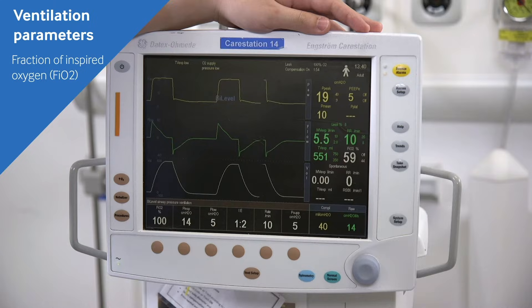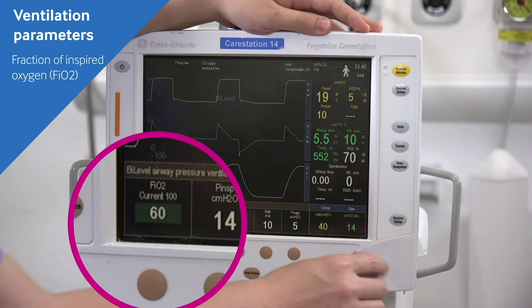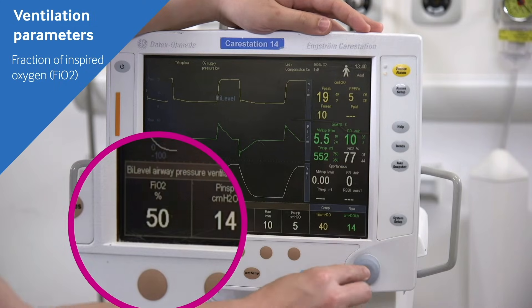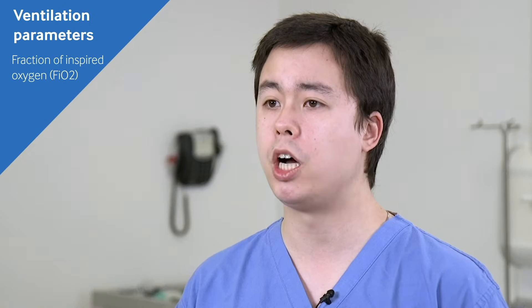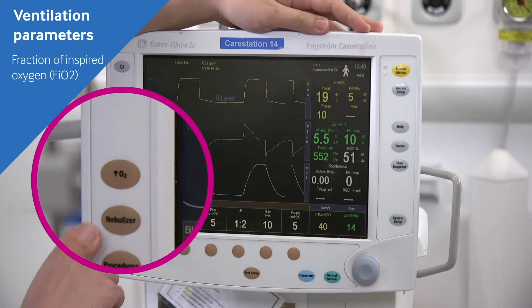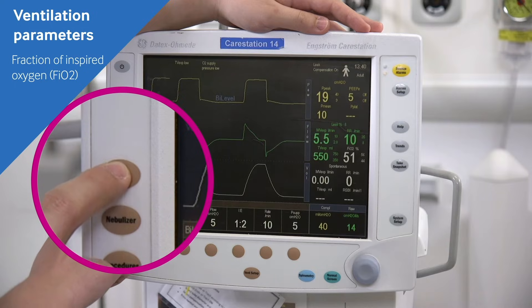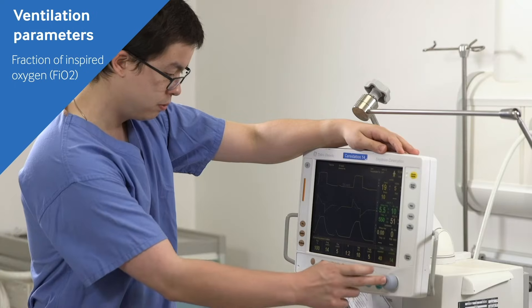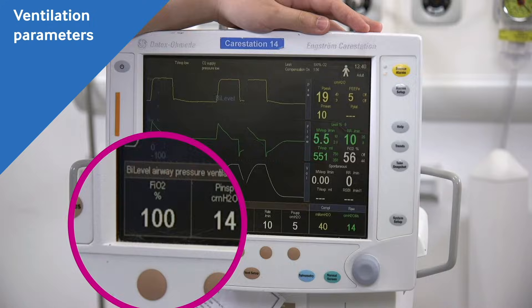The first thing that can be altered is O2. Oxygen should always be titrated to target saturations, and the minimal amount of O2 needed should be used to meet these target saturations. The effect should be followed by looking at O2 saturations and monitoring arterial blood gases. Some machines will also have an emergency O2 button which will automatically change the inspired oxygen concentration to 100%.